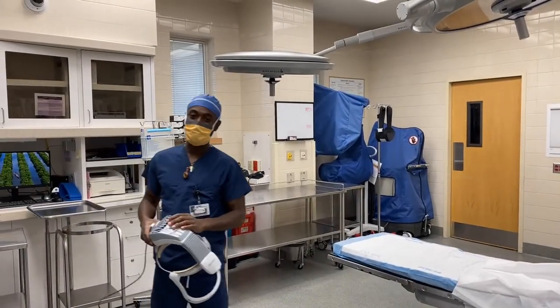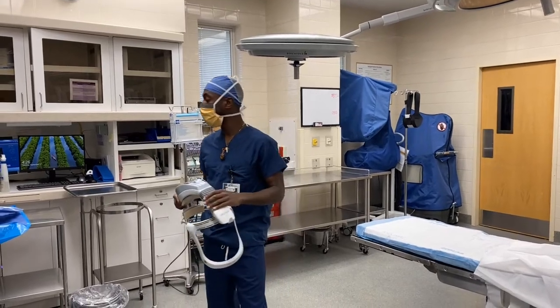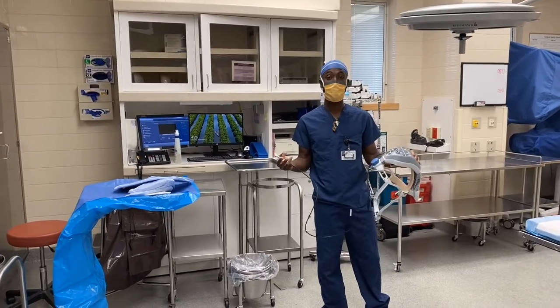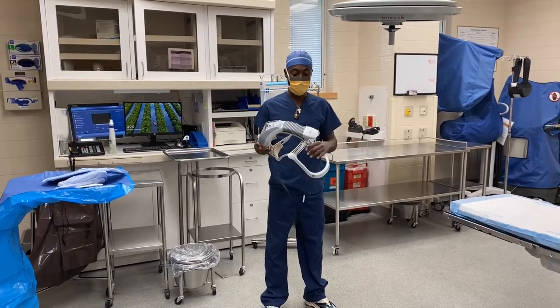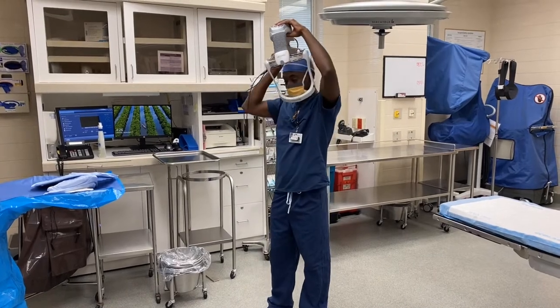What up y'all, it's the Surgical Guru. We're back with another video. Today I'm going to show you how to put a surgical shield onto a surgical hood. When you're scrubbing orthopedic surgery, in order to protect yourself, you usually put on what kind of looks like a spacesuit, and I just want to show you how to put the shield onto the hood.